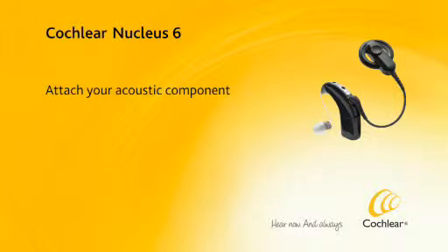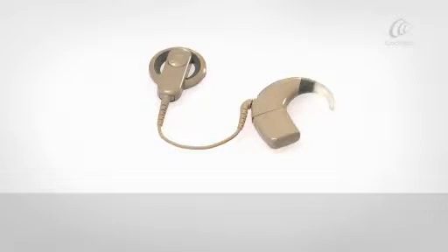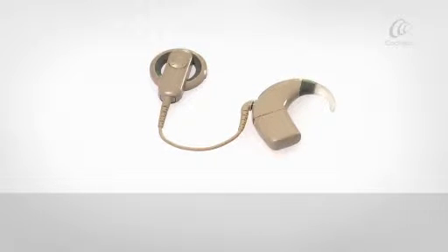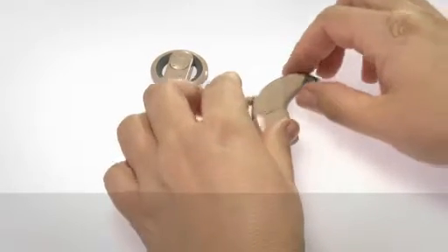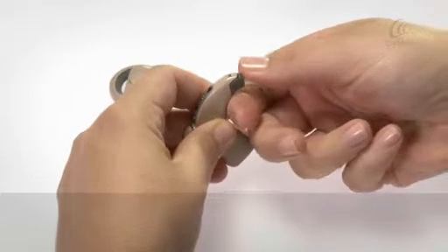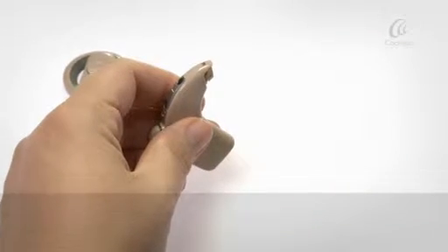To attach your acoustic component, press firmly on the top of the earhook with your thumb to click it off the processor.